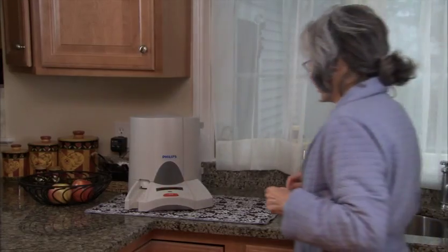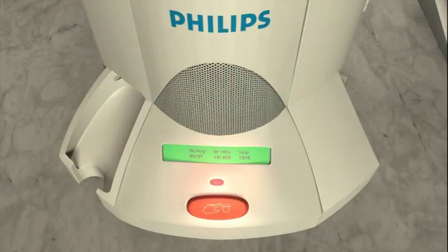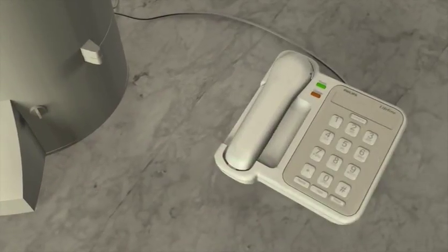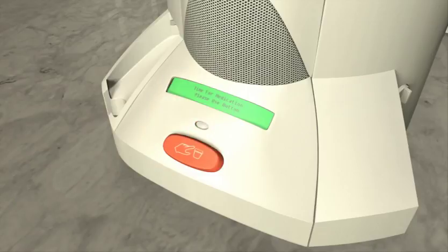Ensuring that patients adhere to their medication regimens, the Philips medication dispenser also has a low dosage alert that prompts a call to the caregivers three days before the programmed medication runs out, and an alert when it's time to refill the dispenser.